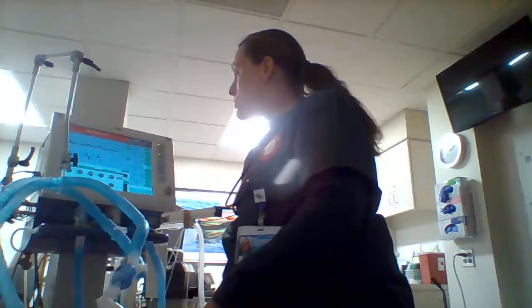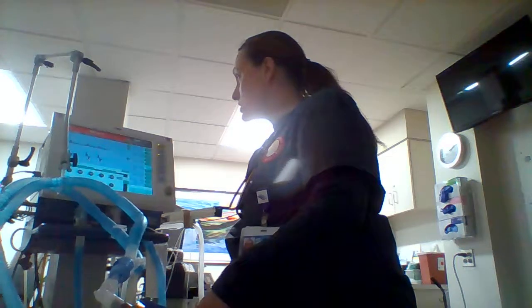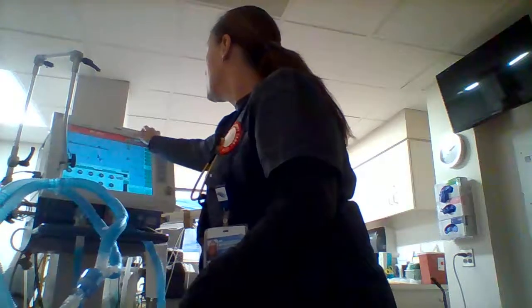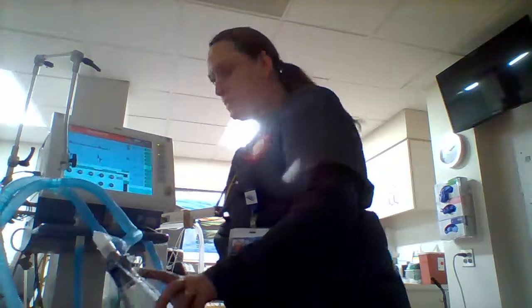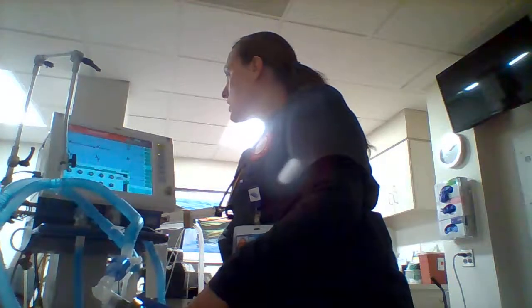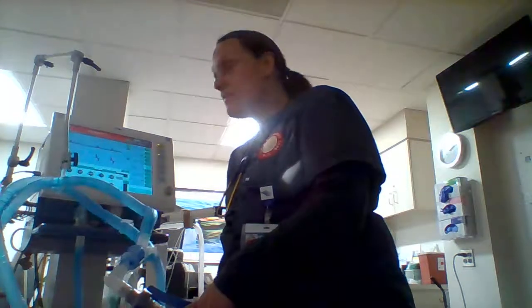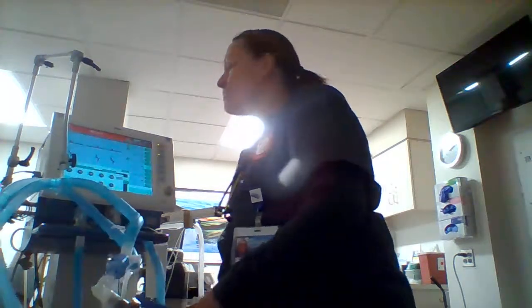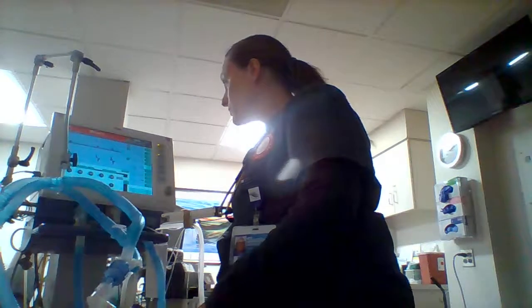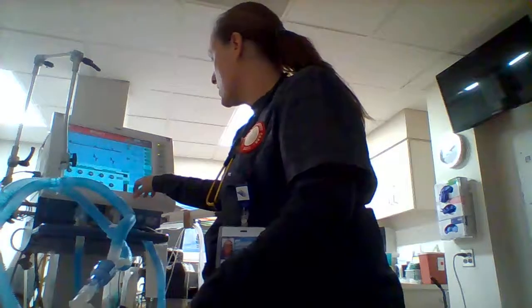So that would be setting up an asthma patient and documenting everything in the chart. It's all in the computer — that would give a nice guideline of what to write down. You'd write down your high and low alarms, your actual versus set values in whichever place is appropriate. High CO2 is 60, low is 30.